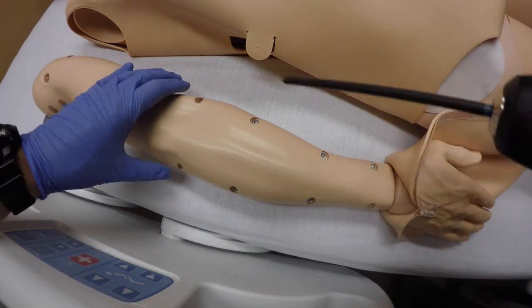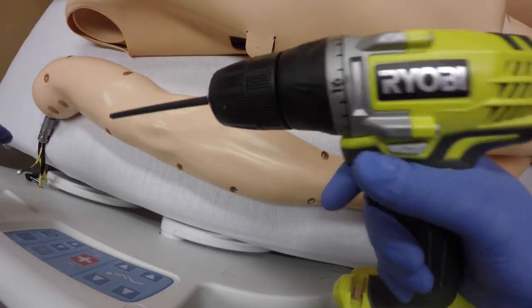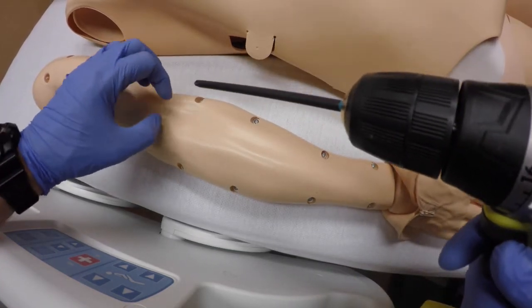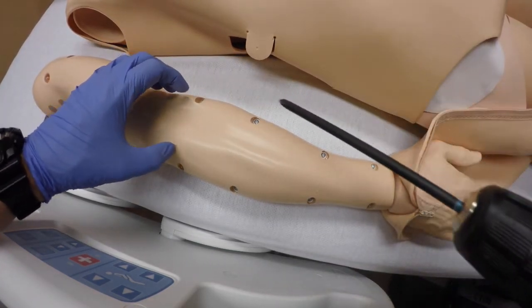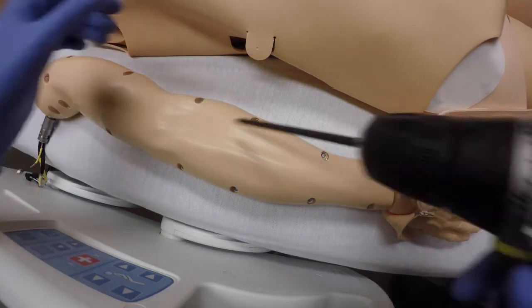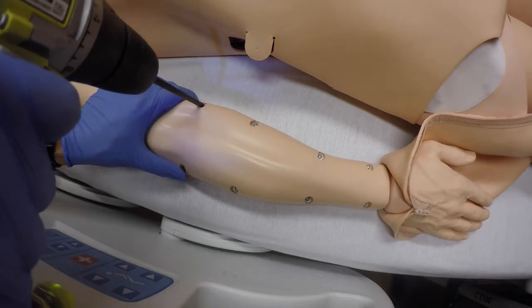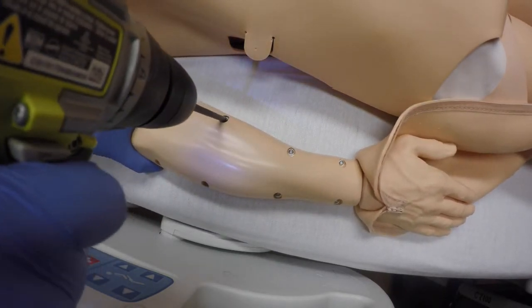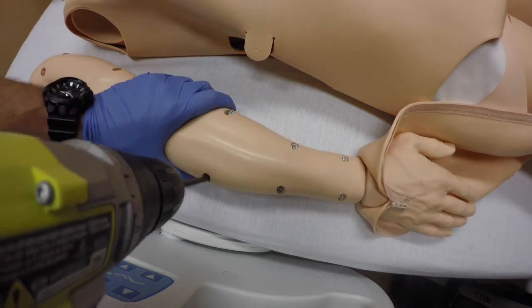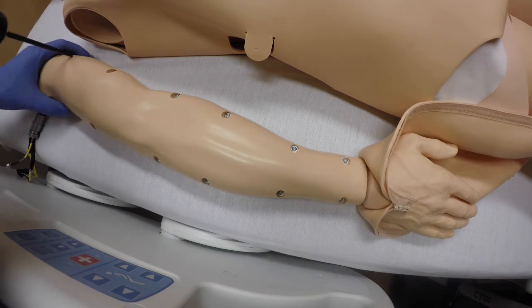I'm going to use the screw gun to remove the screws. I don't recommend this for reattaching them for multiple reasons — the casing here gets kind of soft and can crush pretty easy, so I like to put them back on by hand. But we use a screw gun to remove them. I'm going to remove all the screws that are on here — go ahead and loosen them all up. You don't need to take them all the way out at this point, but you certainly could.